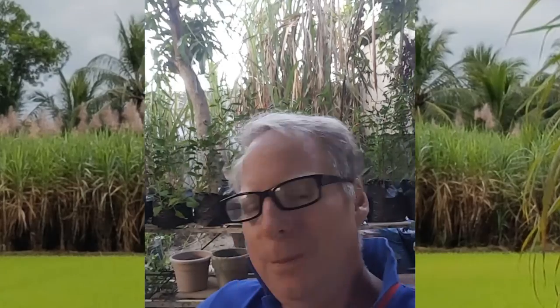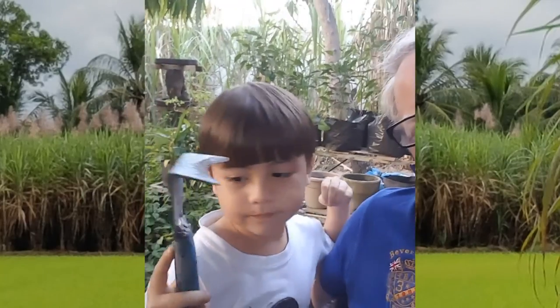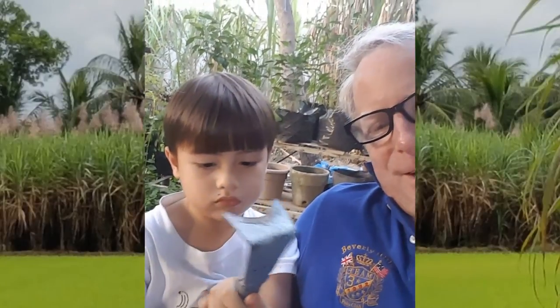Good morning, friends. This is David — this is day two. This morning I've fasted for approximately 12 hours. Here's my son Jared. Today I'm going to take my fasting blood sugar again, then drink Coke, take my blood sugar 15 minutes after, and compare it to yesterday's result after sugar cane juice, which was a score of 97, to see what the equal amount of Coke does.